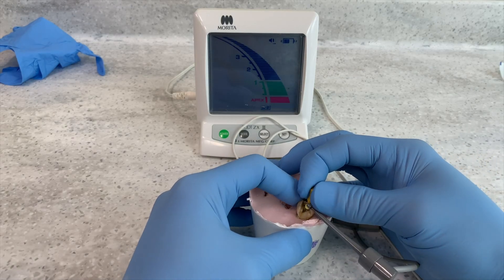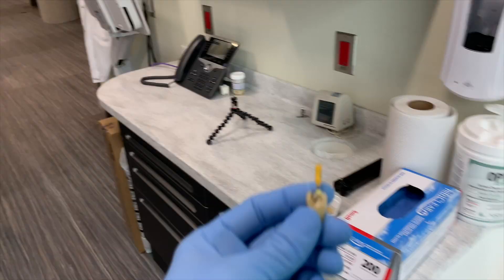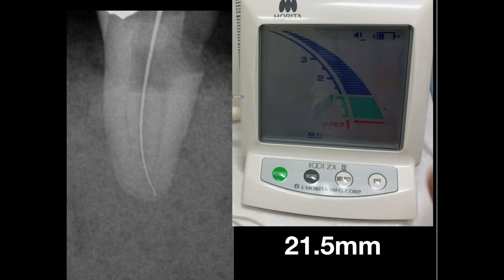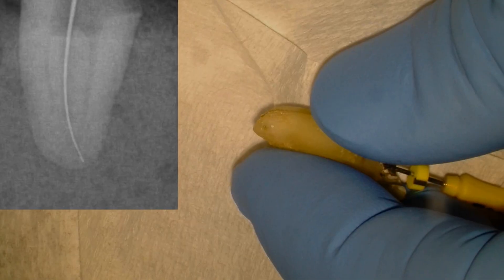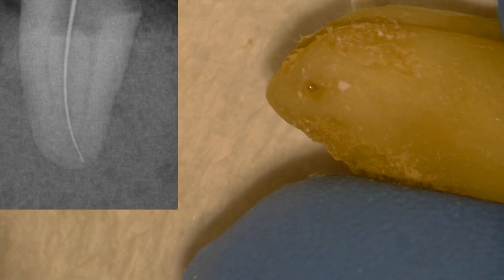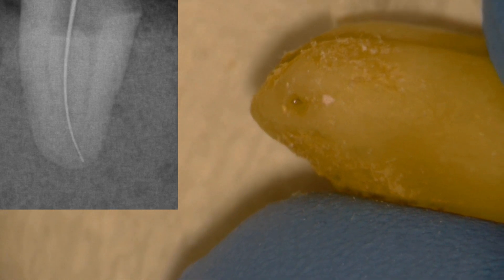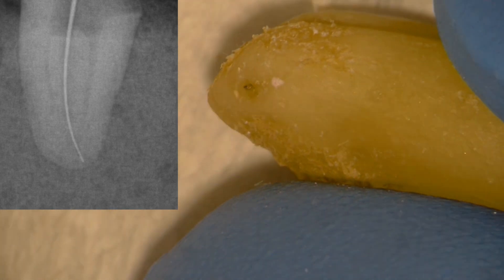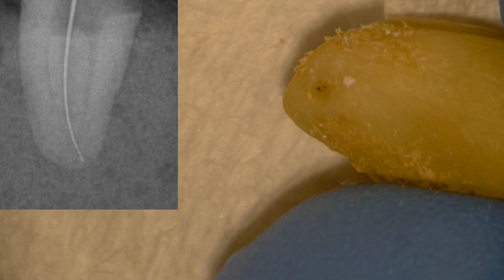So we did four bars — let's back this file out and take a look at one red bar. In our previous video we took x-rays for these teeth at different locations, so we're just going to take a look under the microscope at one red bar. This is where I was trained, and most of my friends are trained, to take our apex locator to — so that you can see the file is just right inside the major foramen, and it's just barely visible. This again is one red bar.